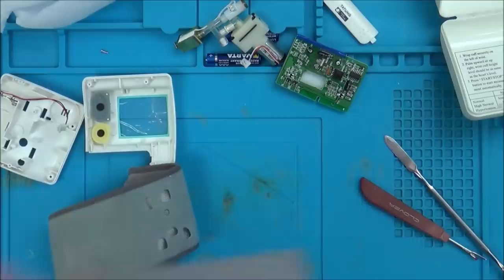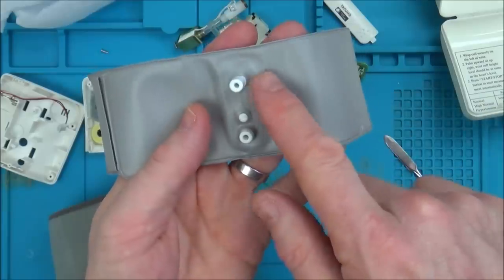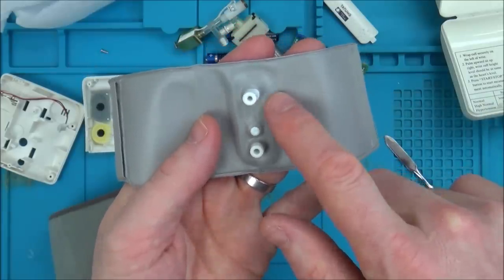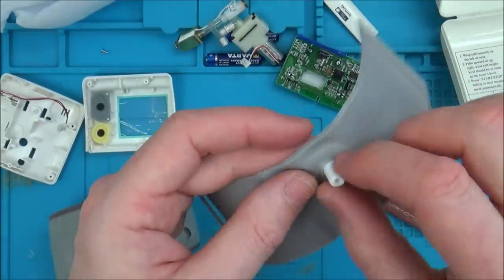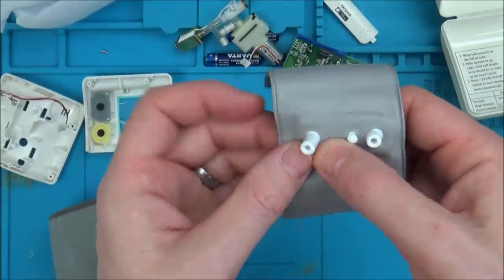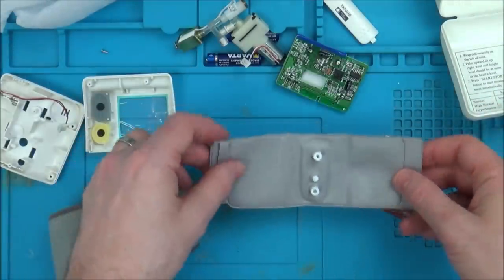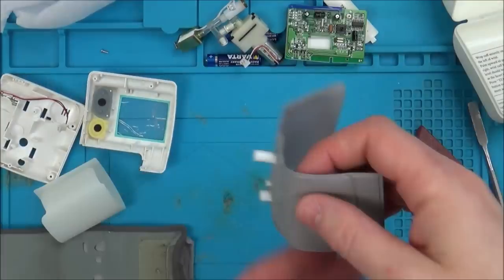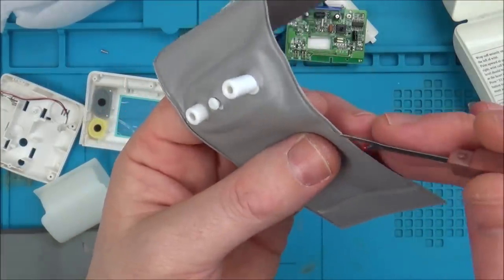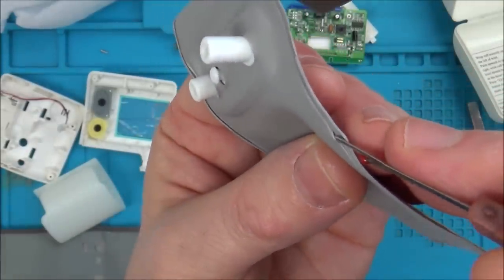Where is this hole? Let's blow it up. I can't find where the actual leak's coming from. 100% there's a leak. When I blow through here it feels like a little bit of cold air is coming up on my nose. So I think it might be from the seal around the edge here. What I'm going to do is get a bowl of water and blow it up - I'm going to see if my wife or kids can see where the actual leak is coming from. My son's seen it straight away. That's the good thing about using water - you can see the air bubbles. It's here, just along the edge here. Can you see the hole? Just there.